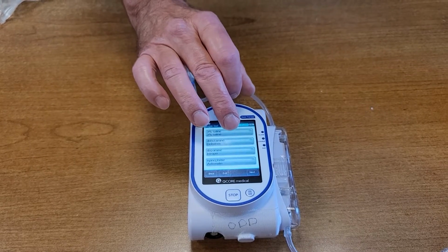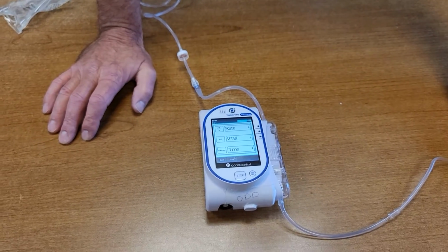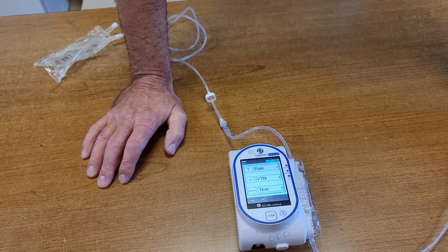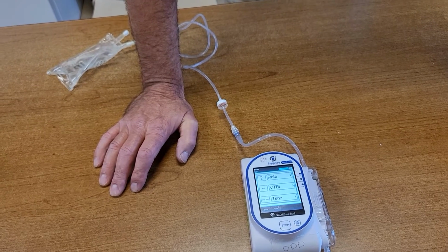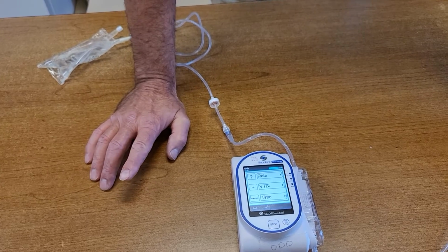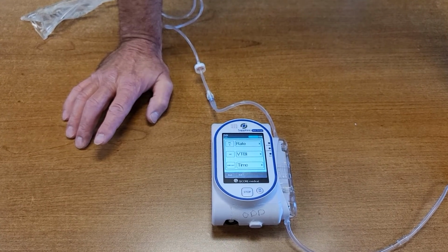So for instance, at 3%, I talked about we ran a drip or we ran a bolus. Do we give an infusion of 3% or do we just give boluses of 3%? It's over 10 minutes, I think. So we don't really give 3% infusions, we just bolus that, correct? But the problem is we cannot give a bolus without giving an infusion. I don't want to give an infusion, so I gave as close to 0 as I could.